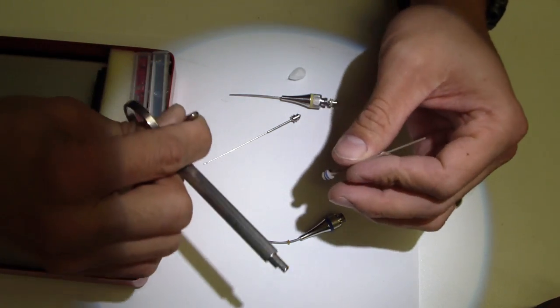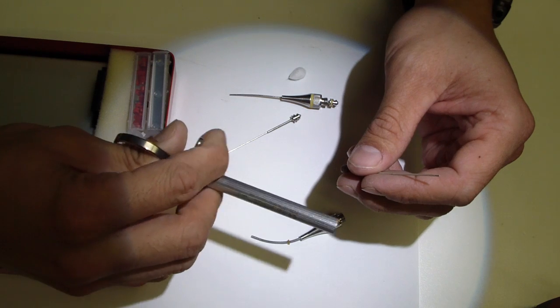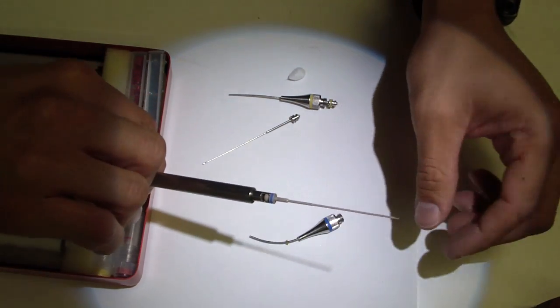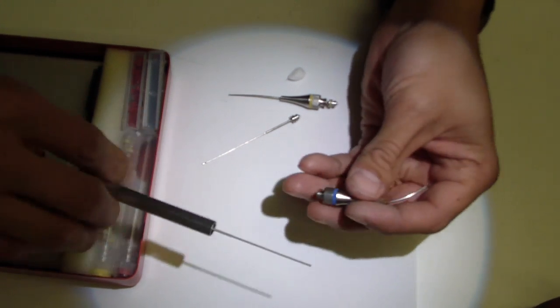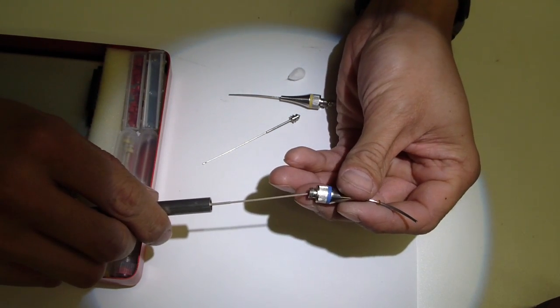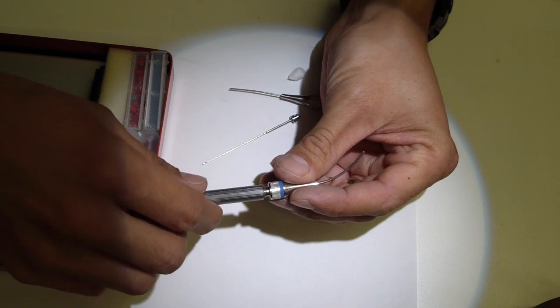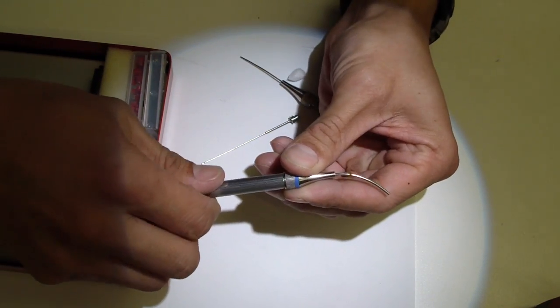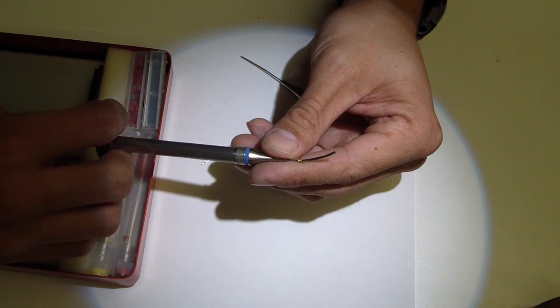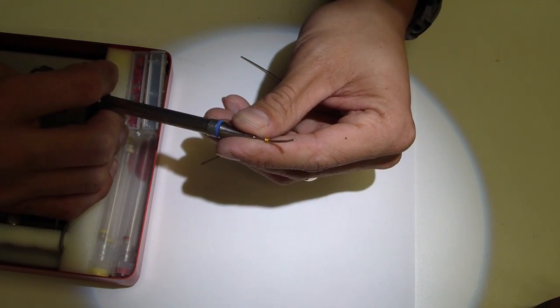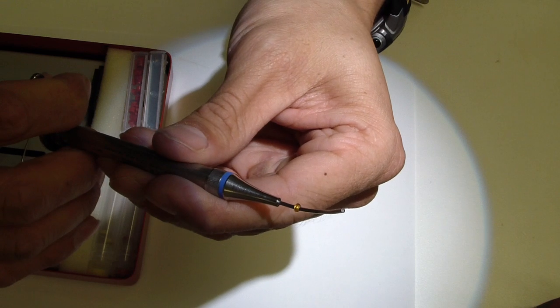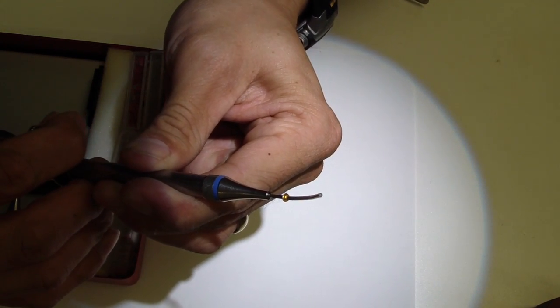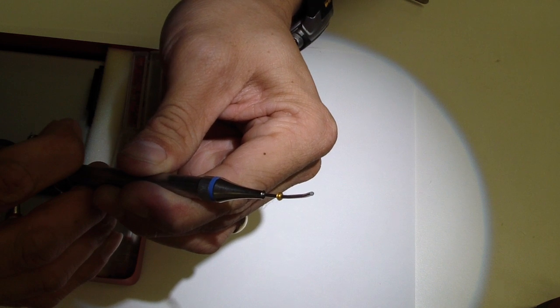We push on the syringe barrel carefully, as the instructions say, put the piston on, release it, and then place the carrier onto the syringe and tighten. Now you've got to make sure that when you go to push, you can see the end of the piston all the way out, because if you don't, it's not going to extrude your material.